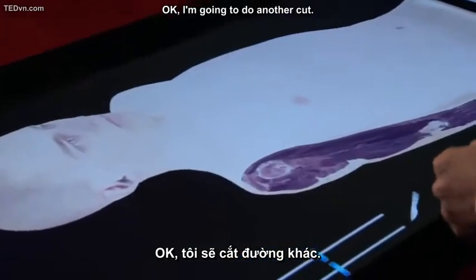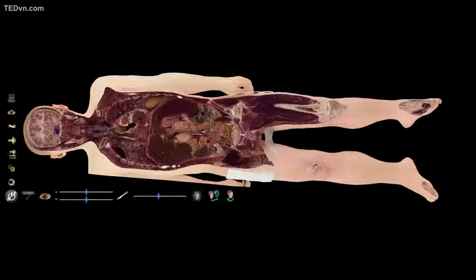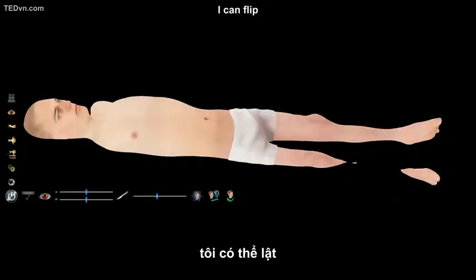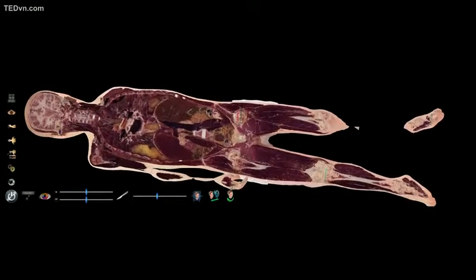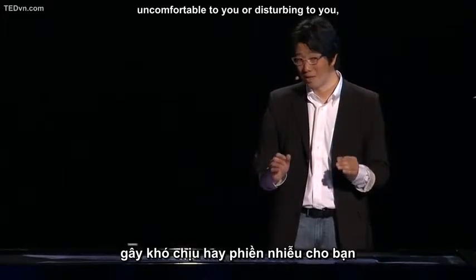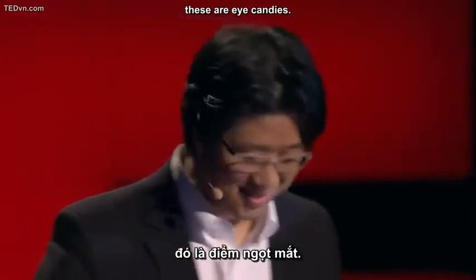Okay, I'm going to do another cut. Right there. It shows a lot of internal structures. So if I want to see the back side, I can flip and see from behind. Like this. So if these images are uncomfortable or disturbing to you, that means we did the right job. Our doctor said these are eye candies.